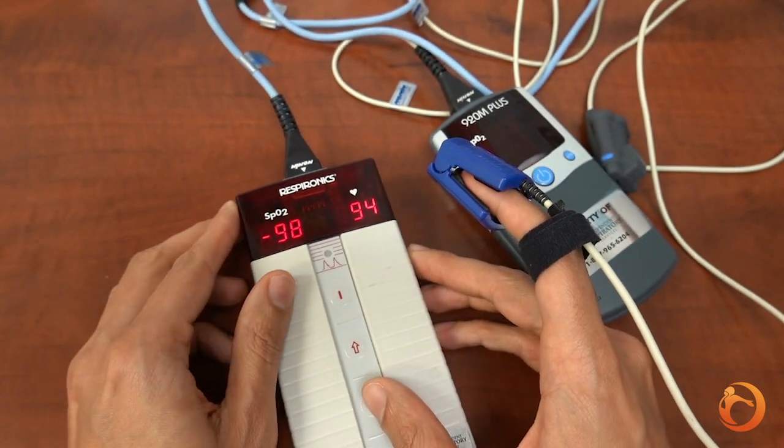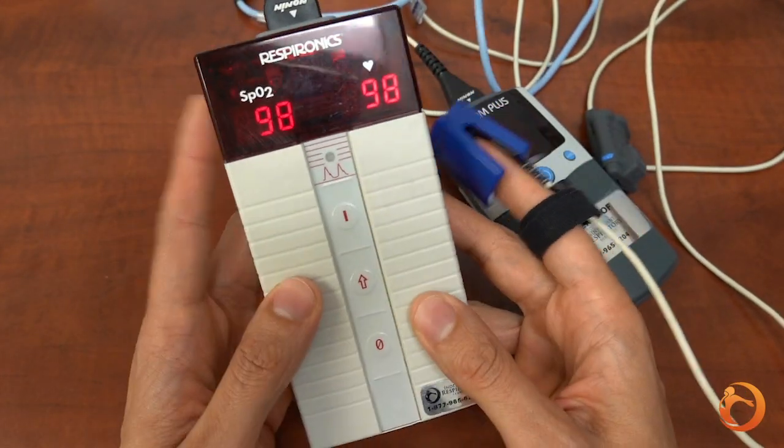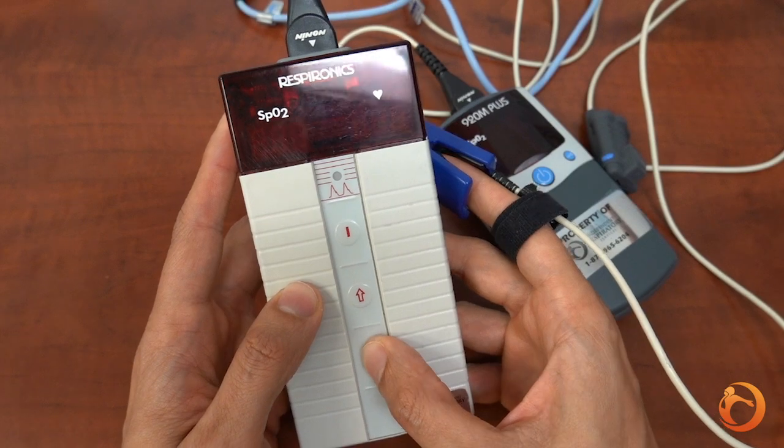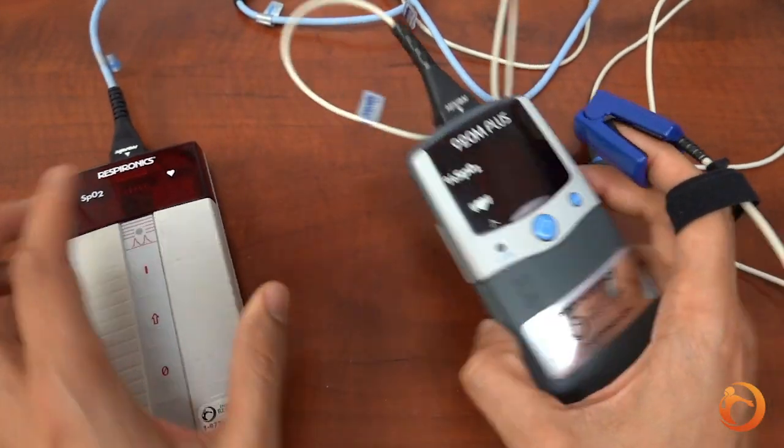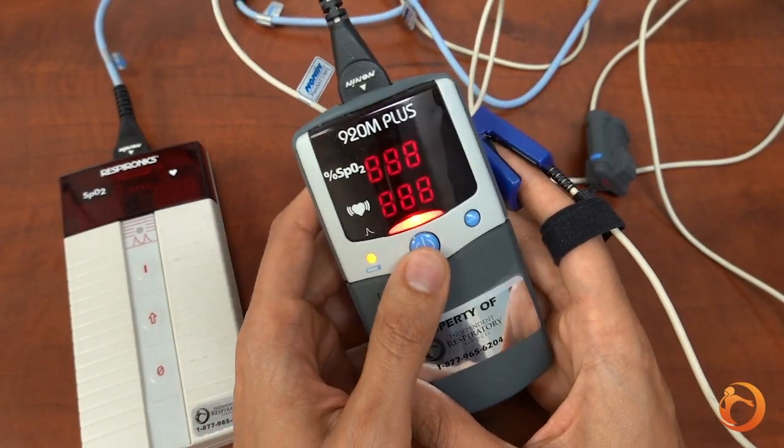In the morning, press the button marked zero to turn it off for the larger model and for the smaller model, hold down the large button until the numbers disappear.